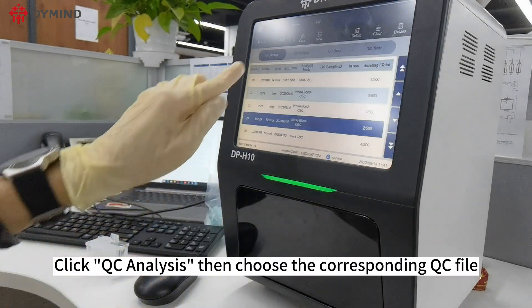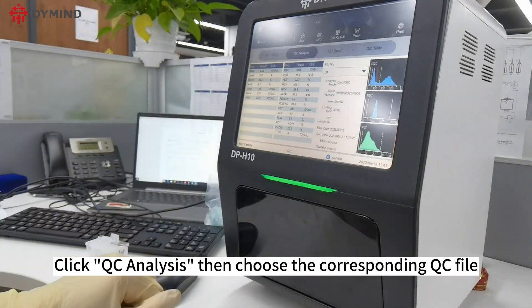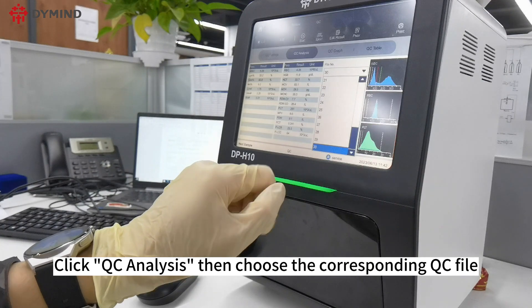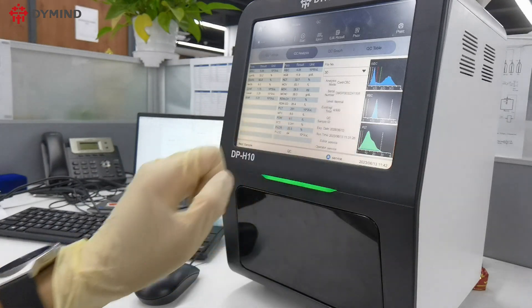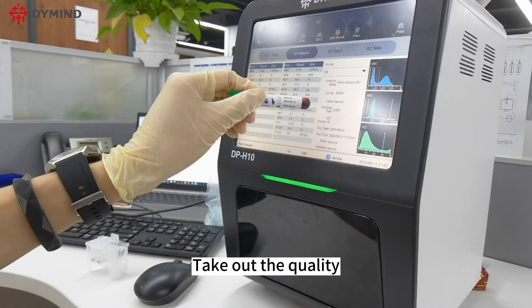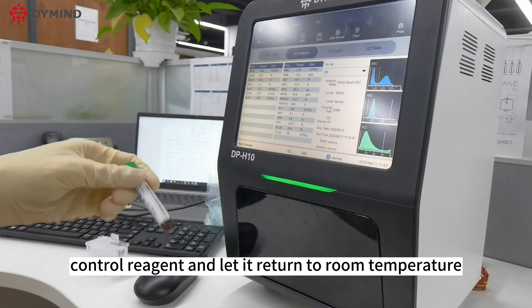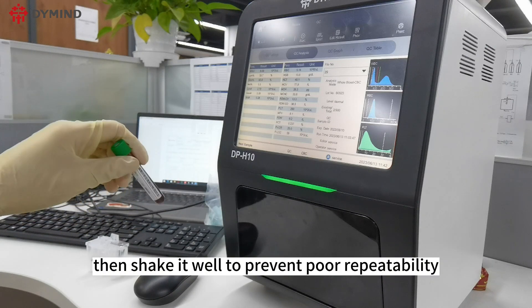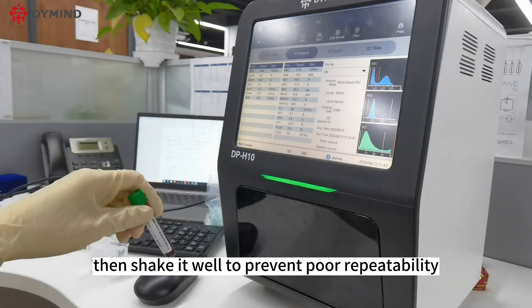Click QC Analysis, then choose the corresponding QC file to prevent abnormal results. Take out the quality control reagent and let it return to room temperature, then shake it well to prevent poor repeatability.